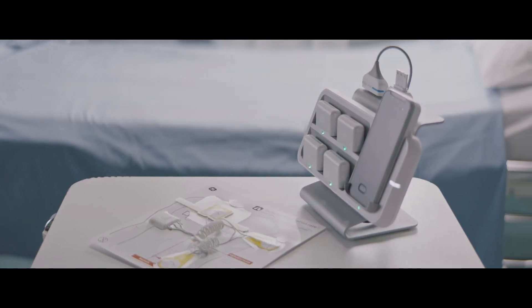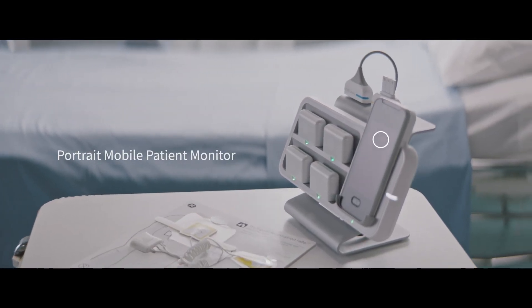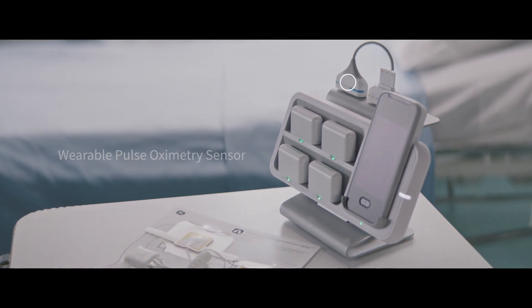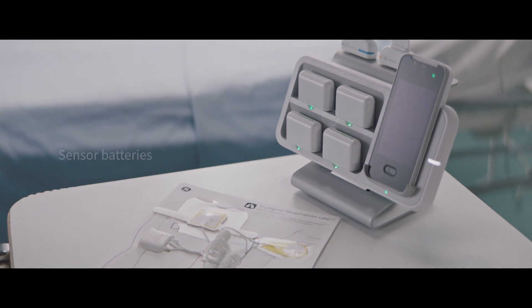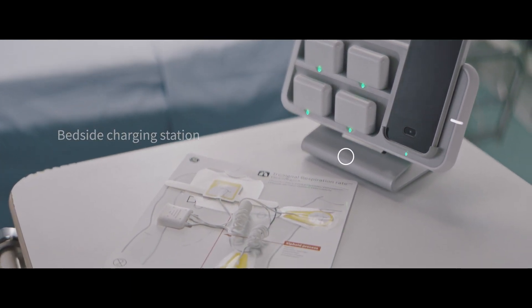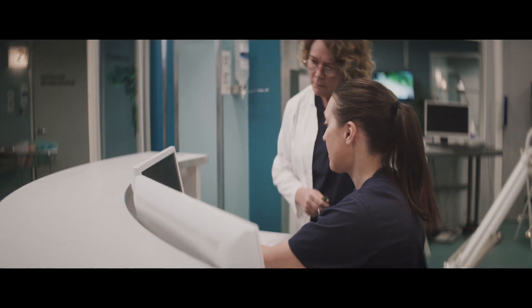The Portrait Mobile solution consists of the Portrait Mobile patient monitor, a wearable pulse oximetry sensor, a wearable respiration rate sensor and electrode patch, sensor batteries, and a bedside charging station. These devices are then networked to the Portrait Central Viewer.